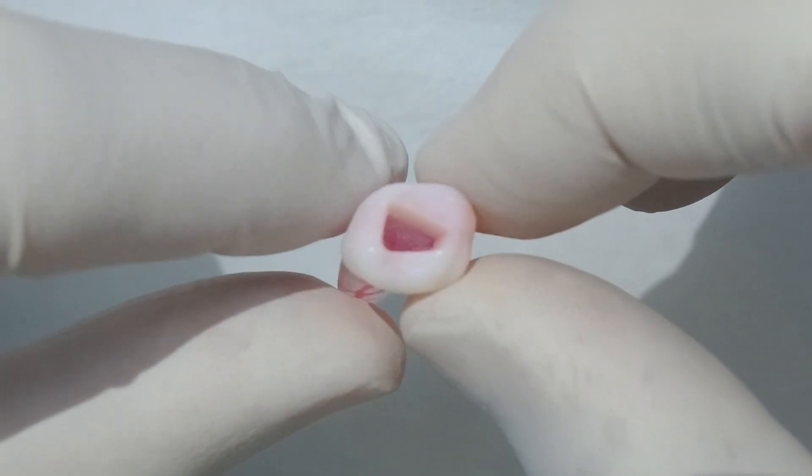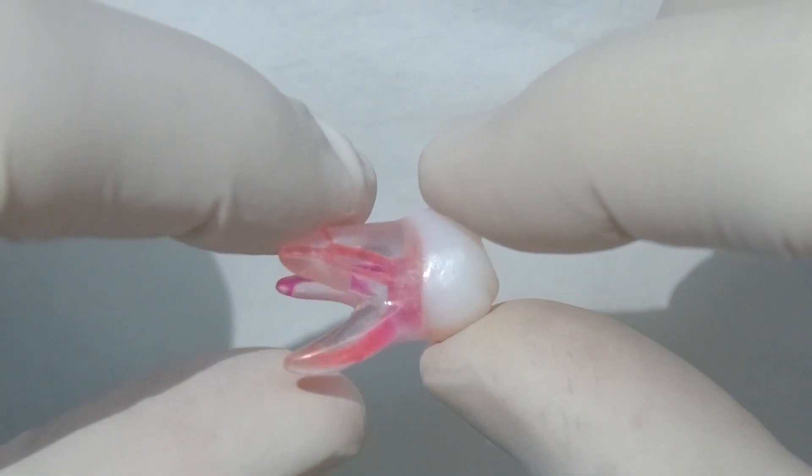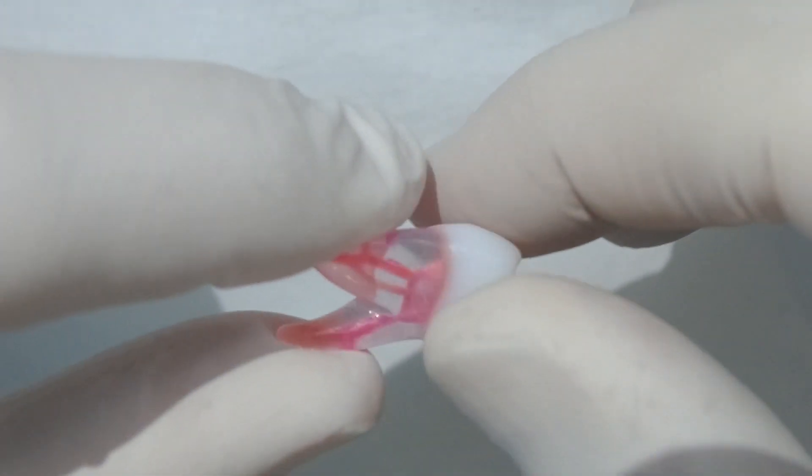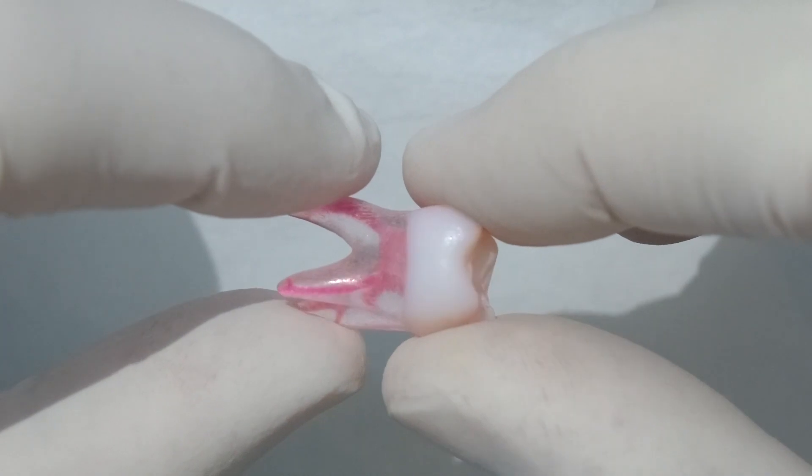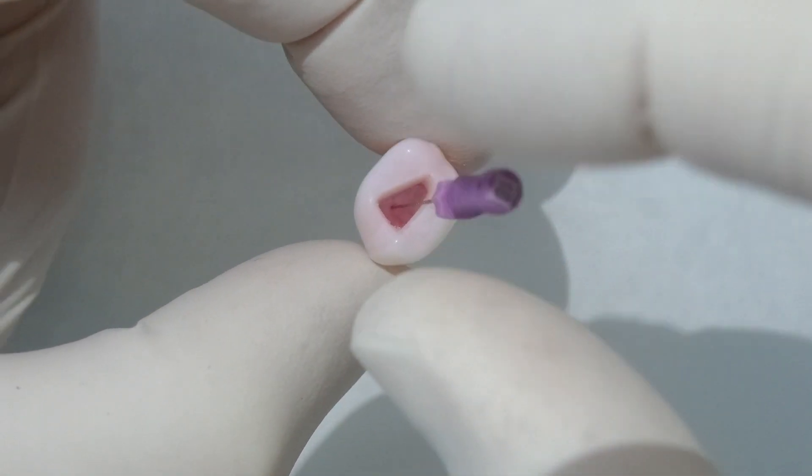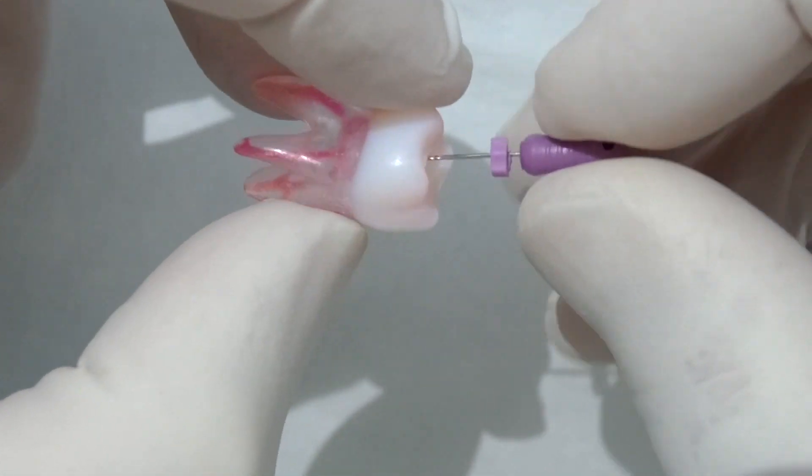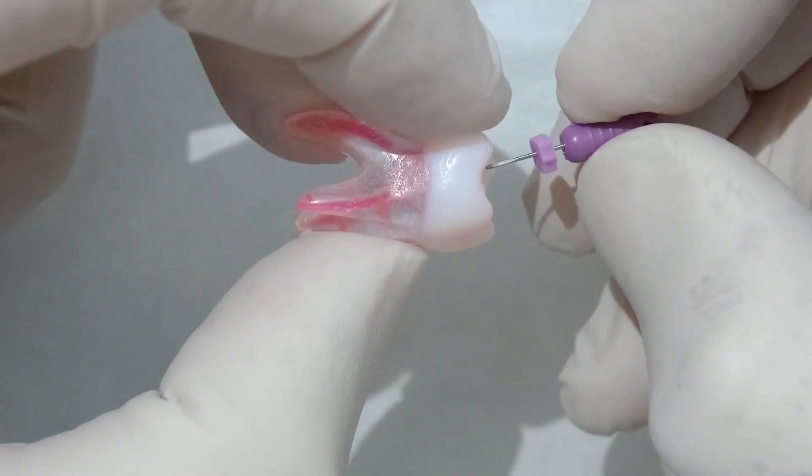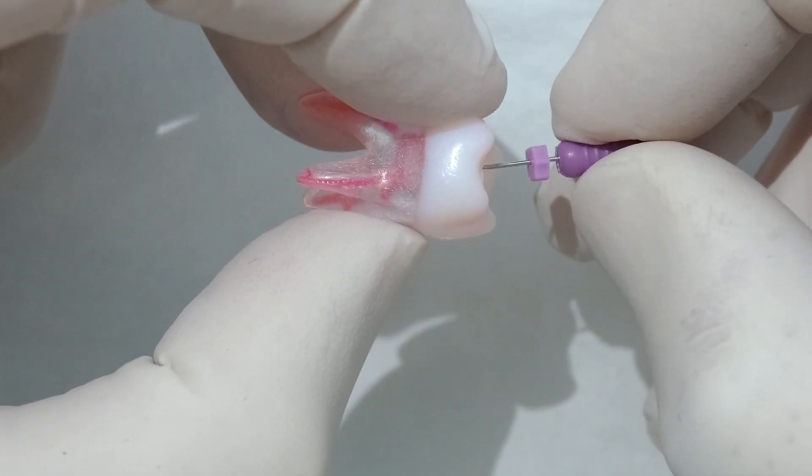It's really life-like, it's a hard-based acrylic and it gives a really nice feel, really similar to dentin actually. Today we're going to concentrate on this disto buccal as part of our demo. Initially, as in real life, we're just going to negotiate that disto buccal just using our size 10 hand file.